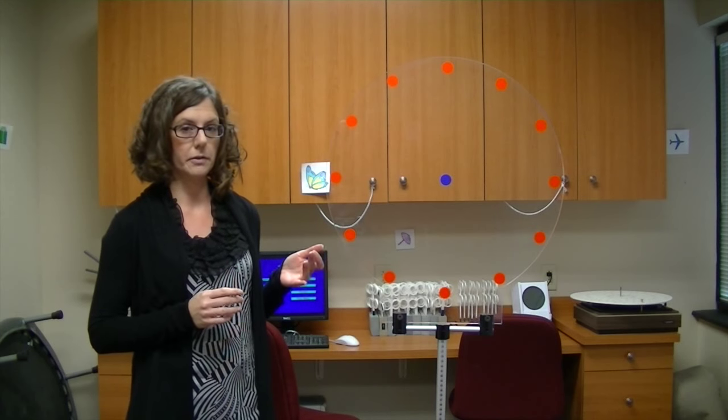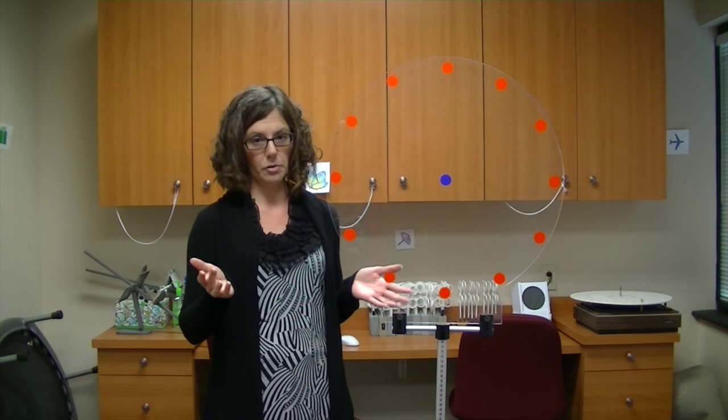This is a great activity, again, that's utilized for reading. But in sports, what it's going to do for the athlete, it's going to help them to stay on their game better. They're going to be more mentally focused with what's going on with the playing field. They're going to be able to stay in tracking whatever's going on with whatever ball or sport they're playing.